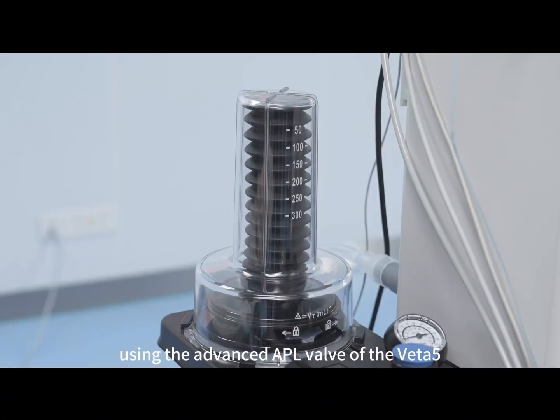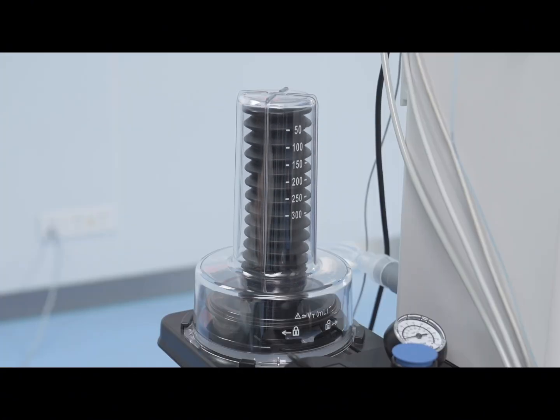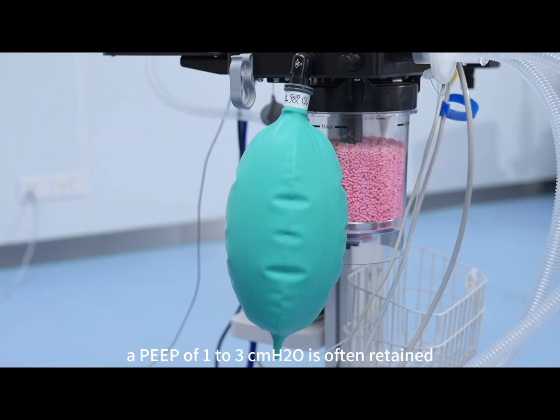Using the advanced APL valve of the Veta5, a PEEP of 1 to 3 centimeters of water is often retained even when the valve is completely open. It is normal and acceptable. If you have higher values, you may want to ask your technical support about it.